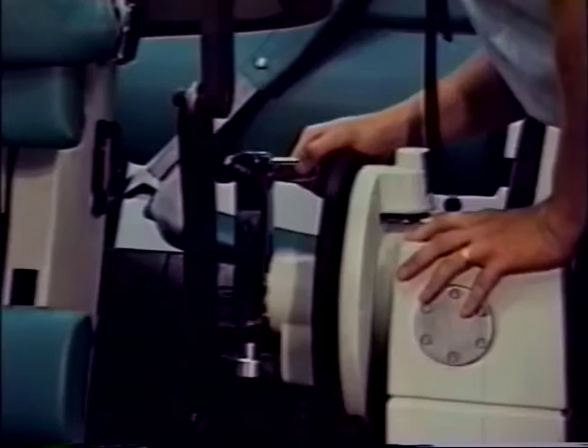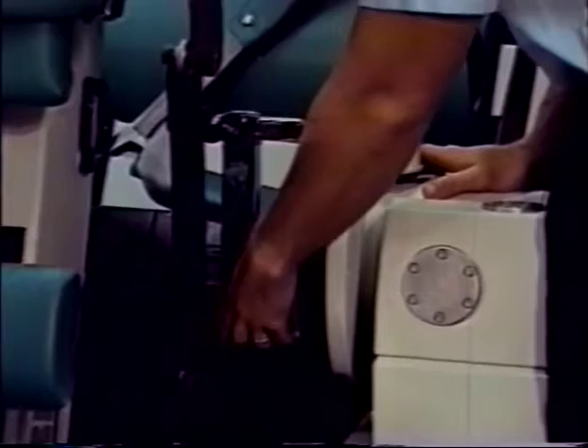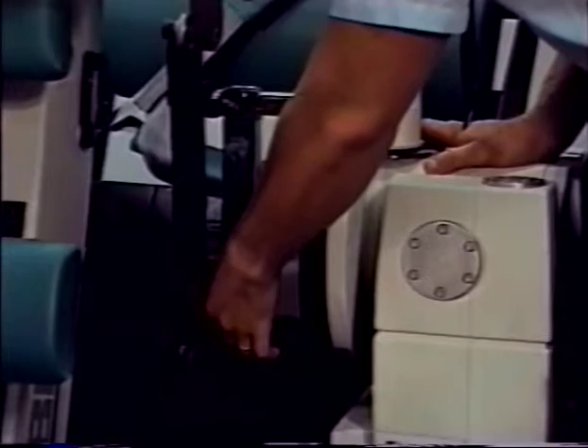If not, it will be necessary to realign the TEF modular component fore-aft position. With the dynamometer as far down as it can go, maintain hand pressure and finger tighten the docking adapter locking knob.